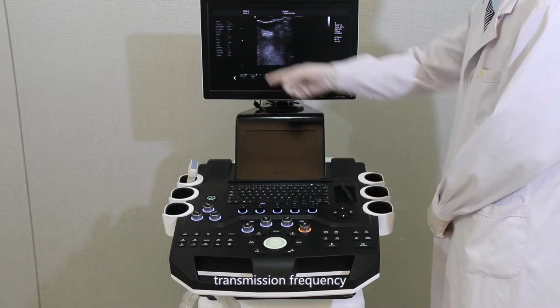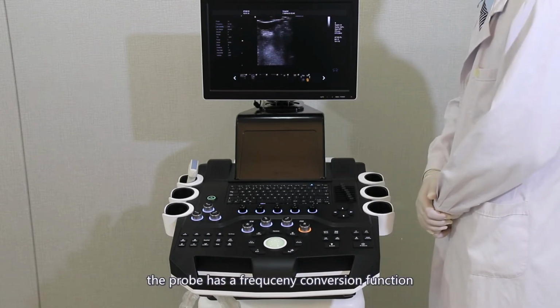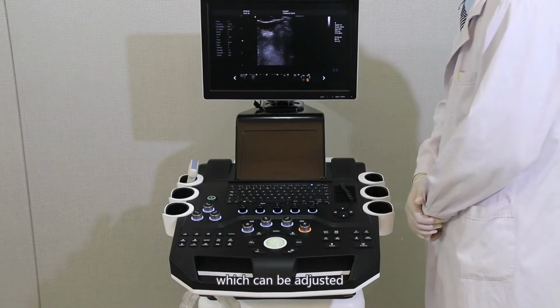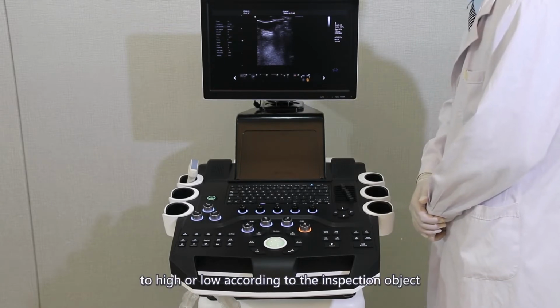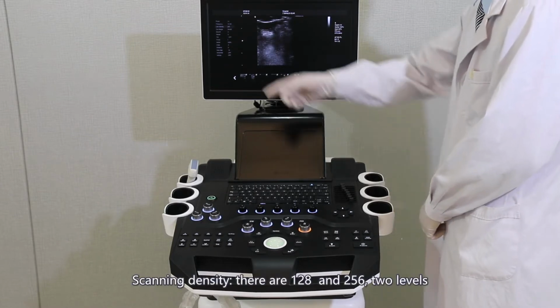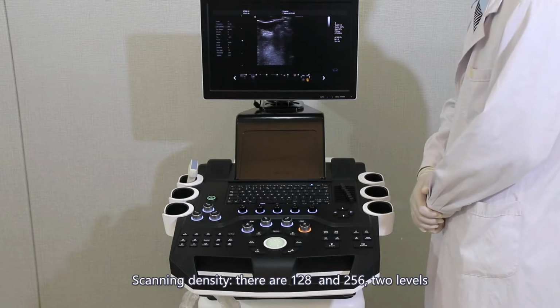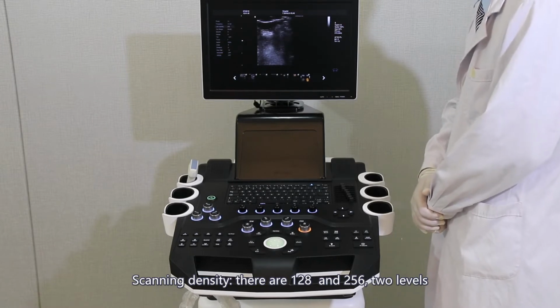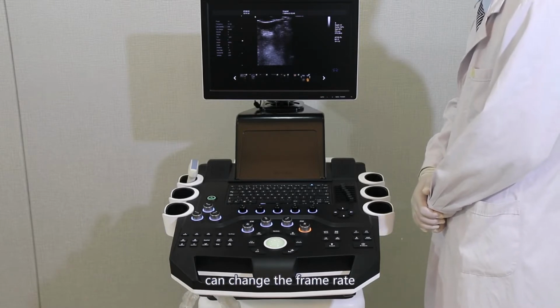Transmission frequency. The probe has a frequency conversion function, which can be adjusted to high or low according to the inspection object. Scanning density. There are 128 and 256 two levels. Adjusting the line density can change the frame rate.